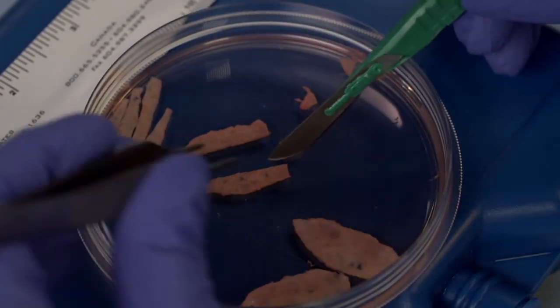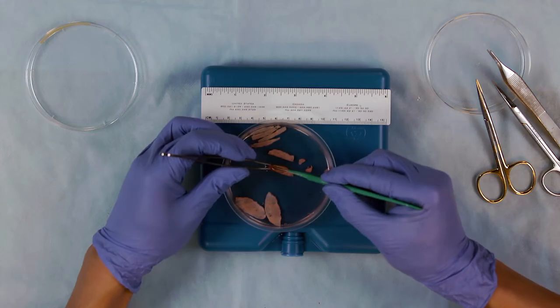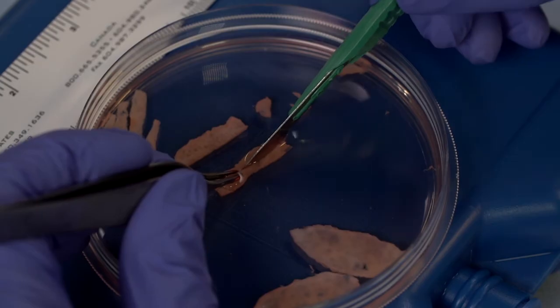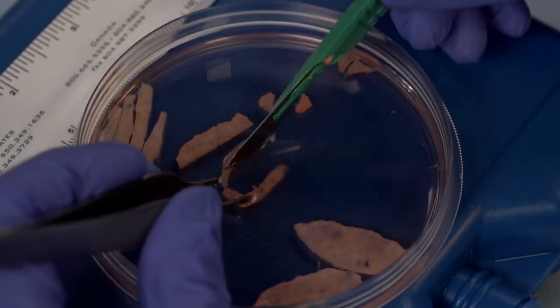Make an effort to cut the edges smoothly and avoid moving the scalpel back and forth. The strips should be about two centimeters long by half a centimeter wide.